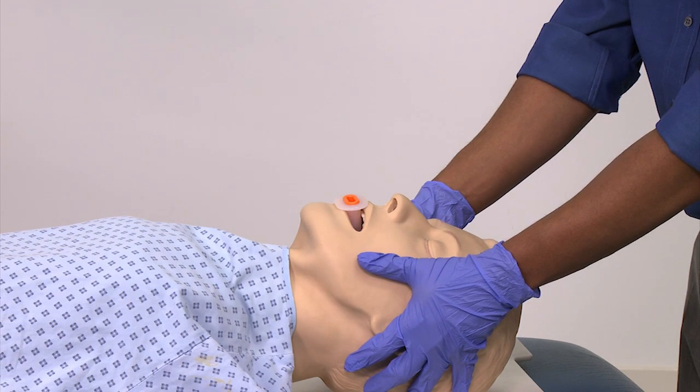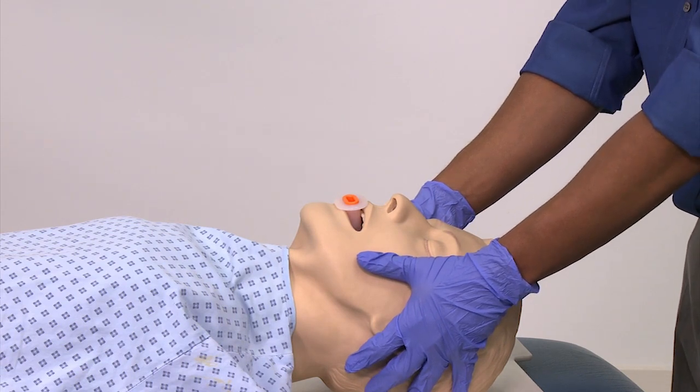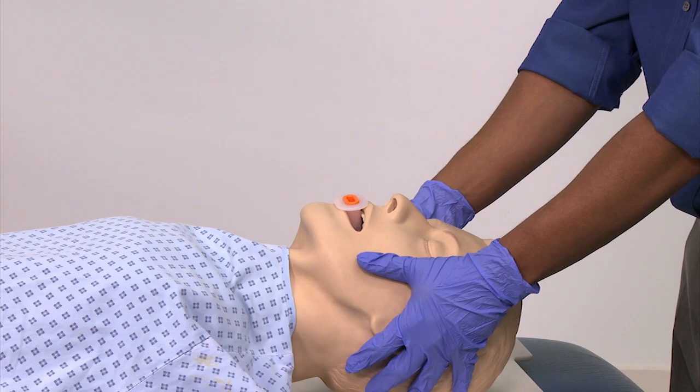In children, however, the Guedel is inserted the right way up to avoid trauma to soft tissues.